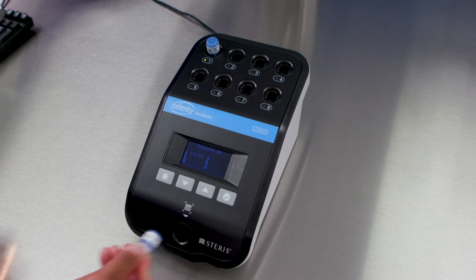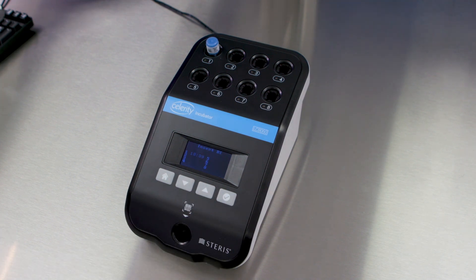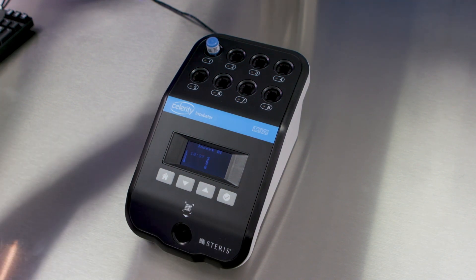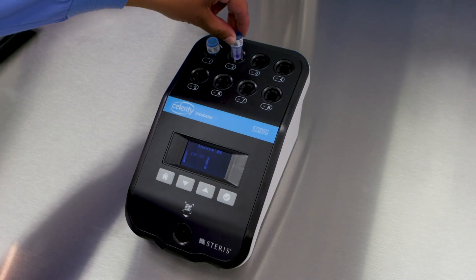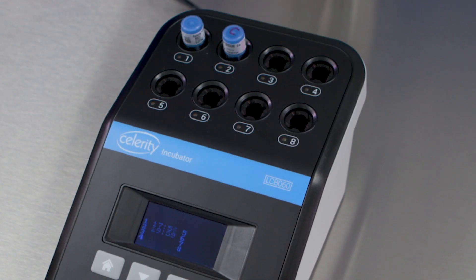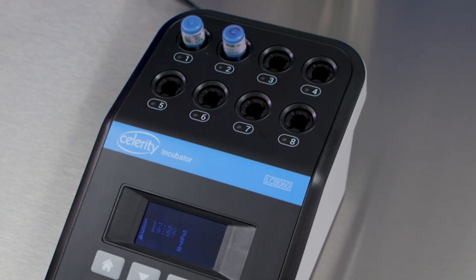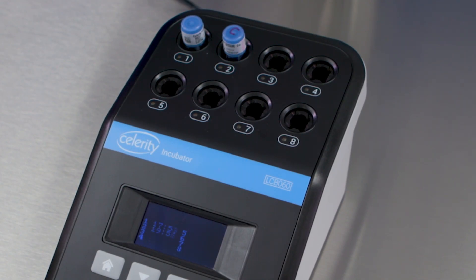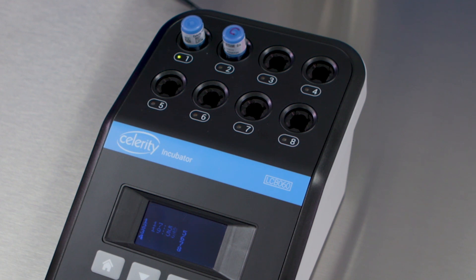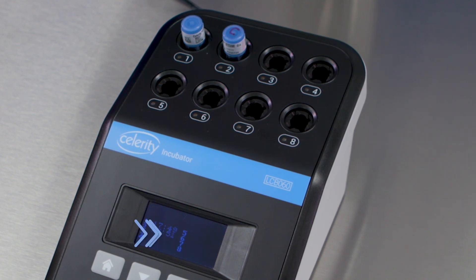Biological controls should be performed each day a test BI is used and whenever a new BI lot is used. Scan and activate an unexposed control BI as previously described. Identify the BI as the control and place the control BI in the incubator.